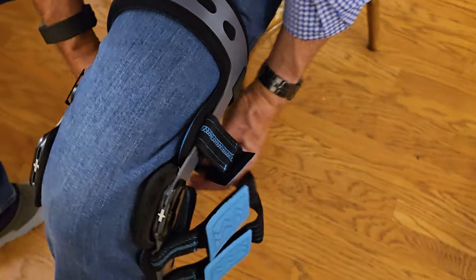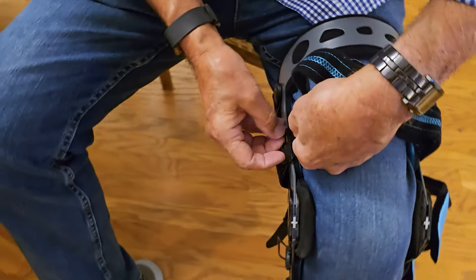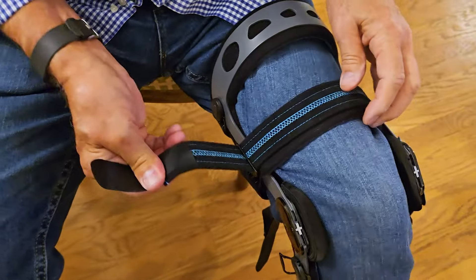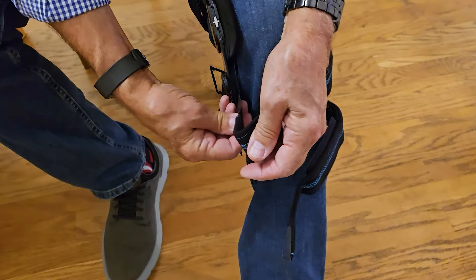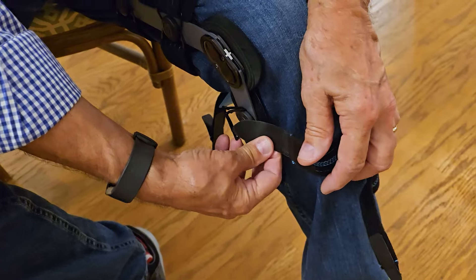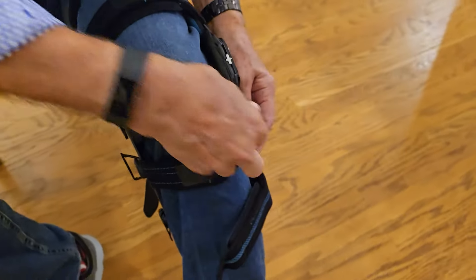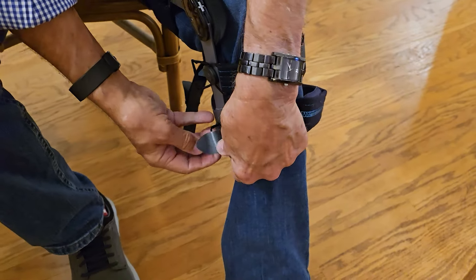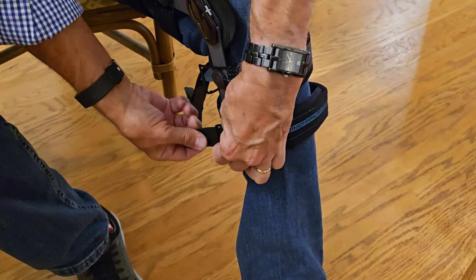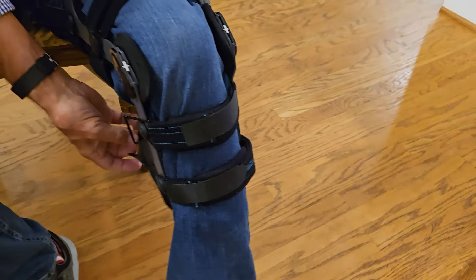This is my father and he's trying it on so we can show you exactly how it goes on. He's looping each strap through — as I said, you've got that firm part at the top, then each other piece he's looping through the front and the back independently, so they won't pull on one another. Once done, he'll stand up and walk around so you can see.